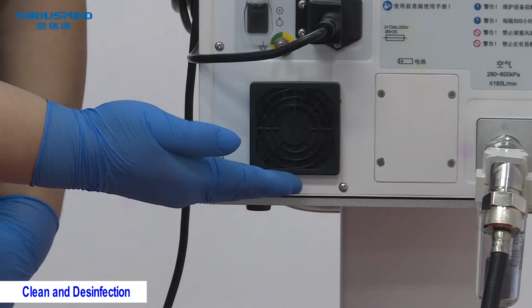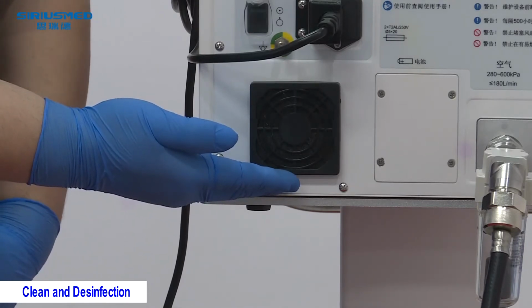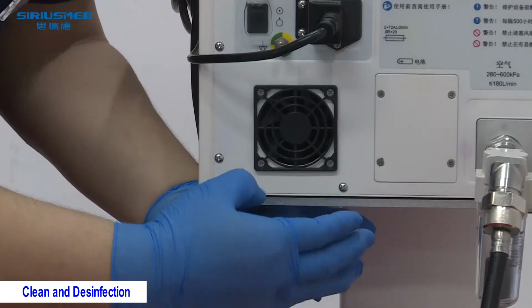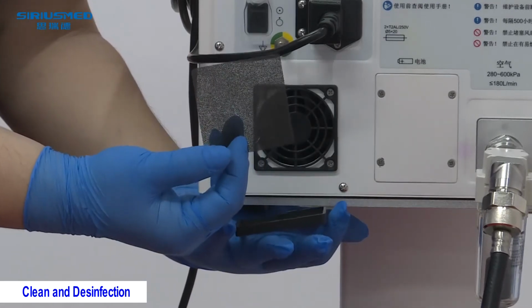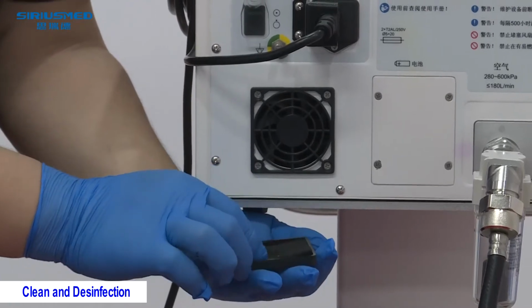Notice of the cooling fan. This cooling fan has a filter inside and needs to be cleaned every 500 hours in the daily use of the ICU room. For this dust filter, you just need to clean it in water and dry it, then put it back to reset onto the machine.